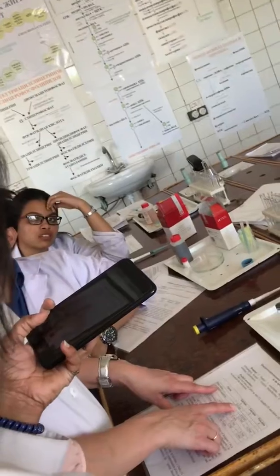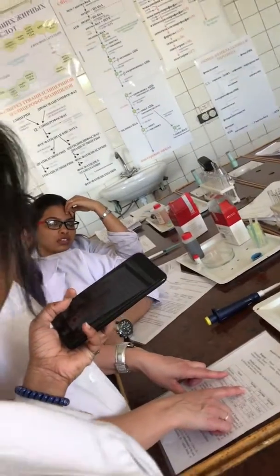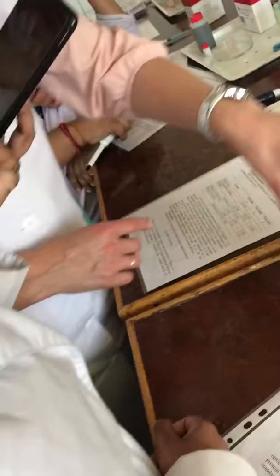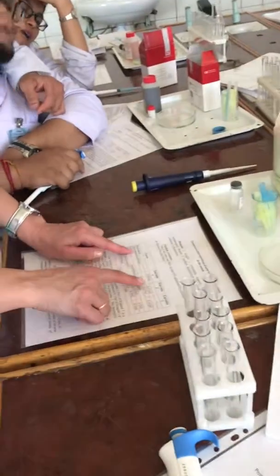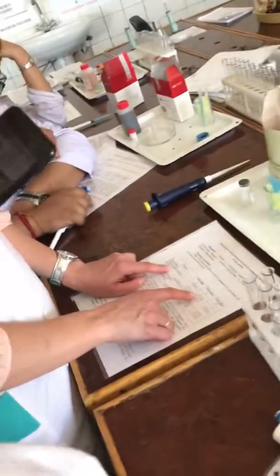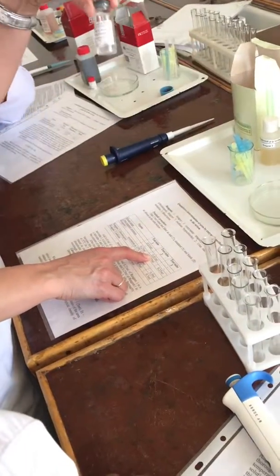In this table, you see, before you begin, you take three test tubes. In the first, you add blood serum. In the second, you add standard — it is for urea.